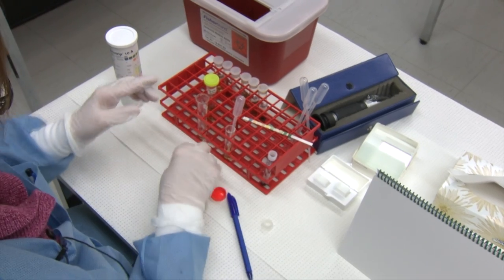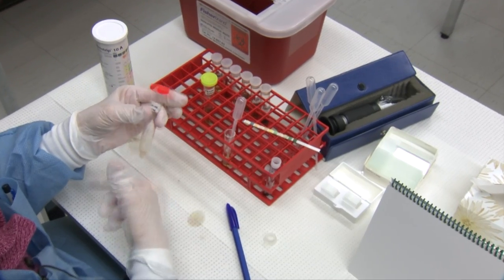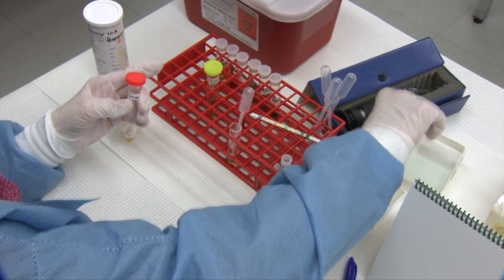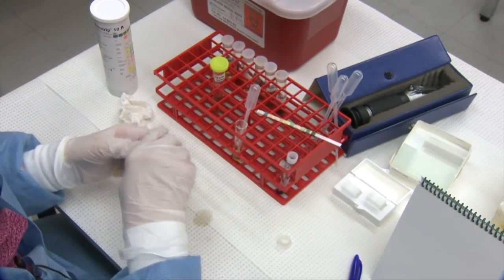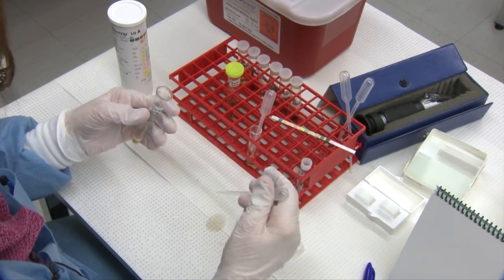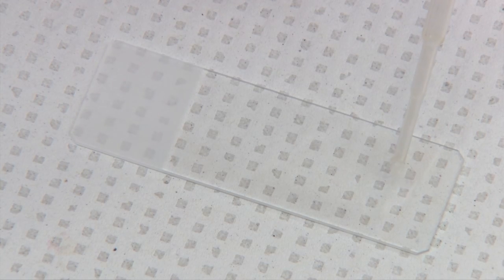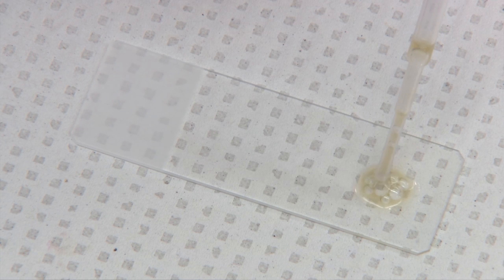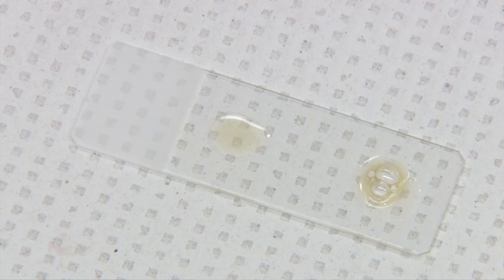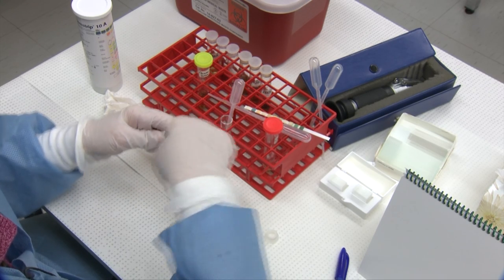Now that you have your sediment, you want to make a slide. We use both stained and unstained sediment for our analysis. The unstained is where we do all of our counting. The stained preparation actually dilutes your sediment and adds artifacts that can easily be mistaken for bacteria, so you always want to do all of your counting from the unstained urine, and just go back to the stained urine if you need help identifying something.